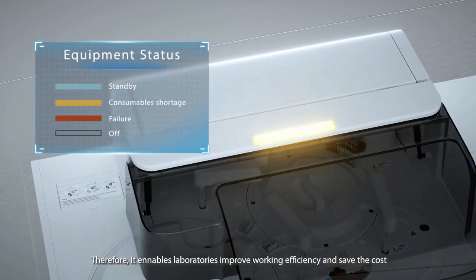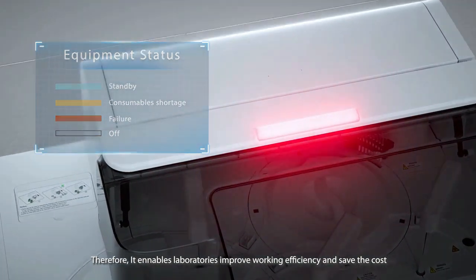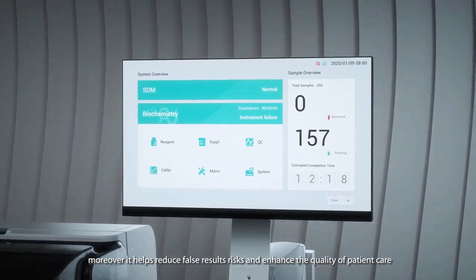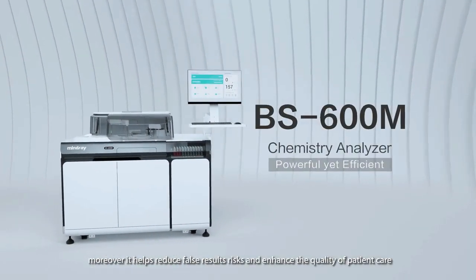Therefore, it enables laboratories to improve working efficiency and save cost. Moreover, it helps reduce false results risks and enhance the quality of patient care.